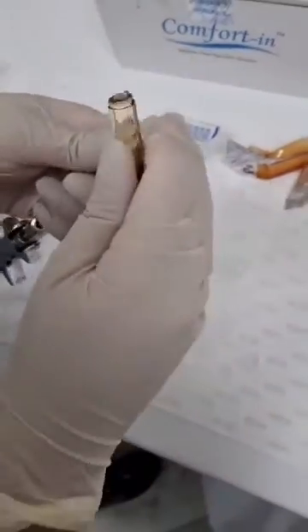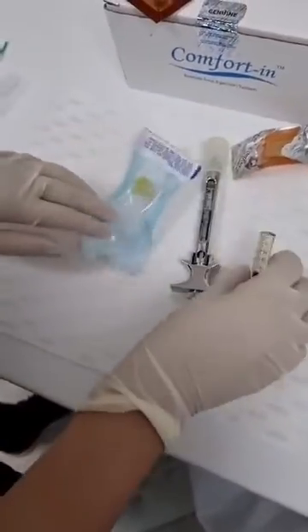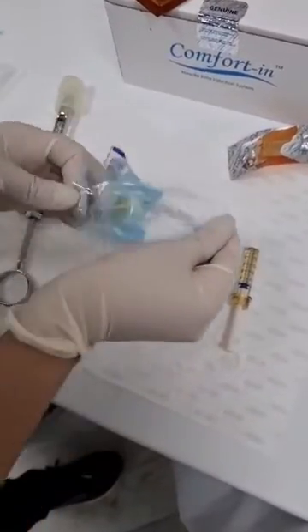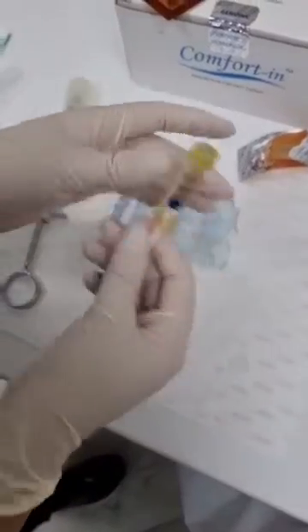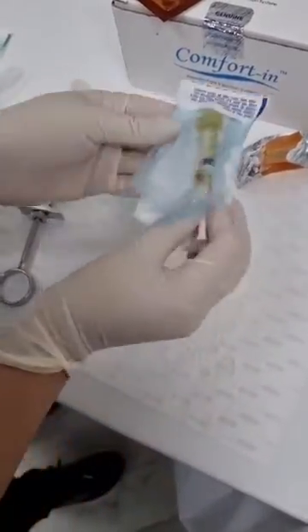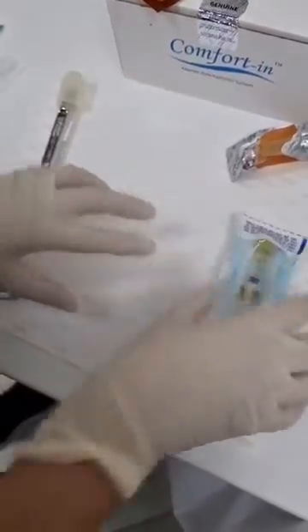That's it, done — easy, and that's ready. And you don't need this. One of these are autoclave, so you press that and secure it back, and that's ready to go.